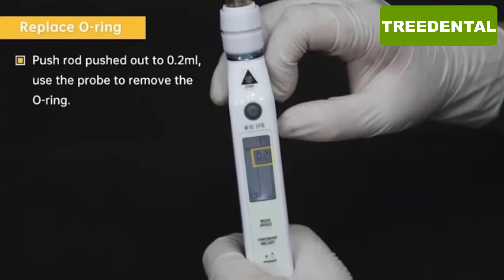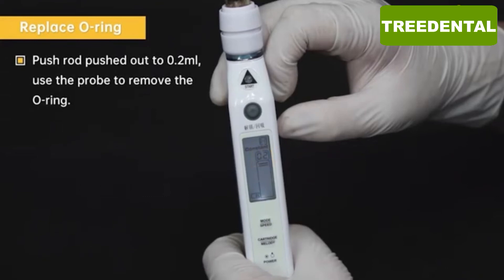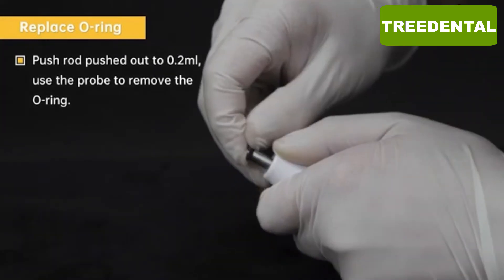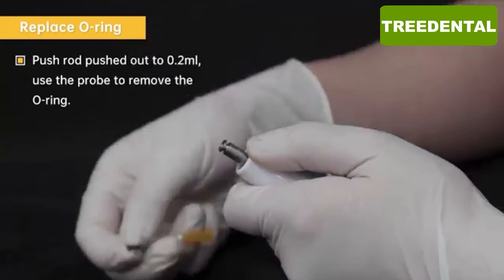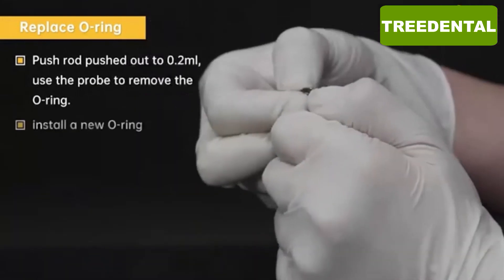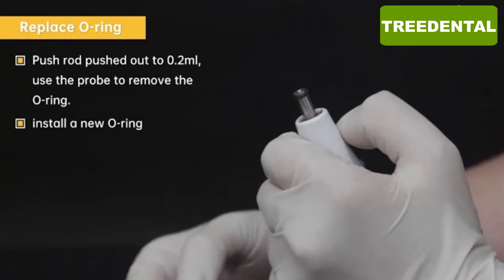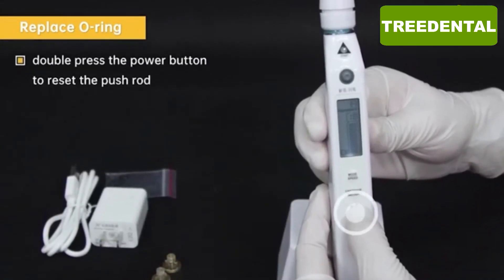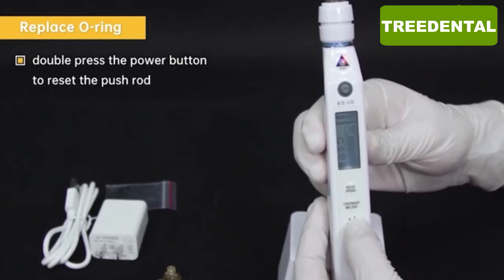Push the push rod out to 0.2 ml. Use the probe to remove the O-ring. Install a new O-ring, then double press the power button to reset the push rod.